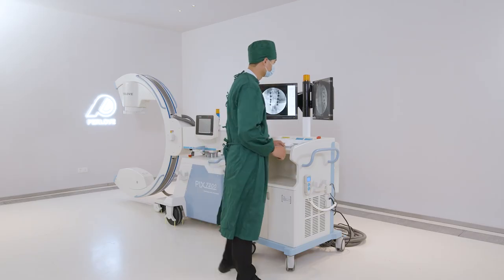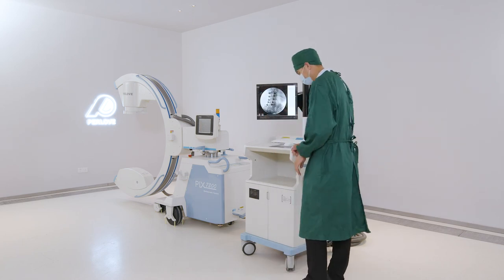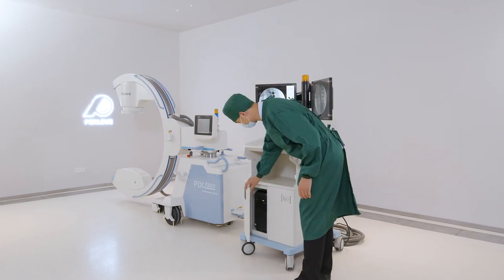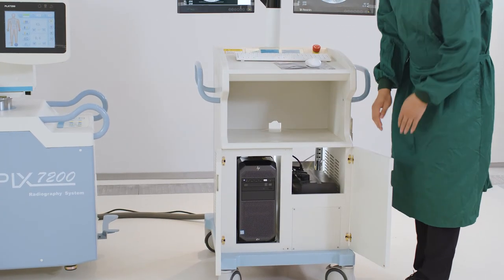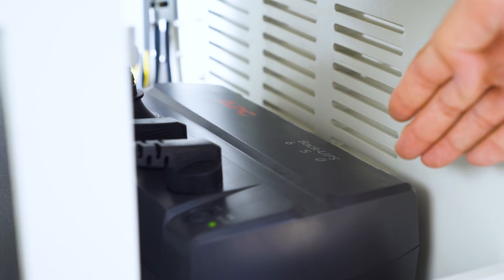The system is equipped with the UPS power supply, which maximizes the data security and facilitates the movement between the operation rooms when the system is consistently powered on.